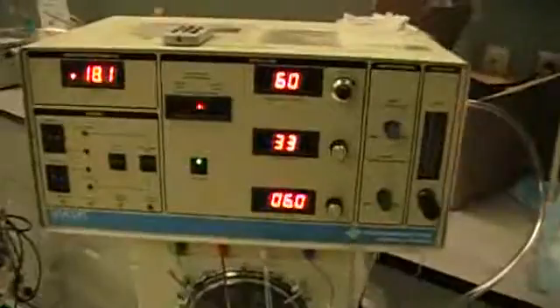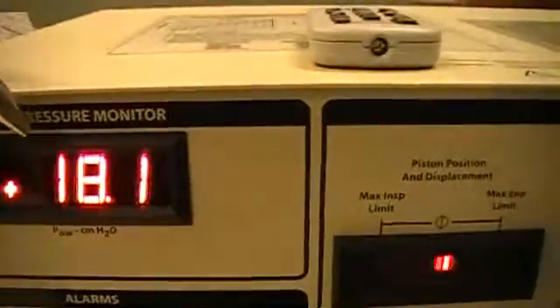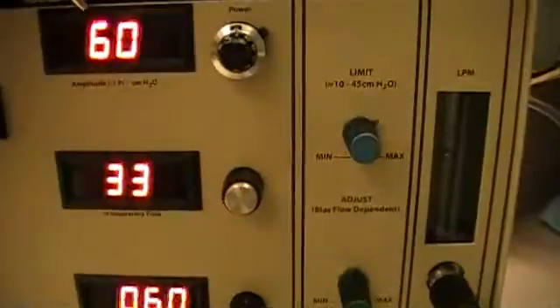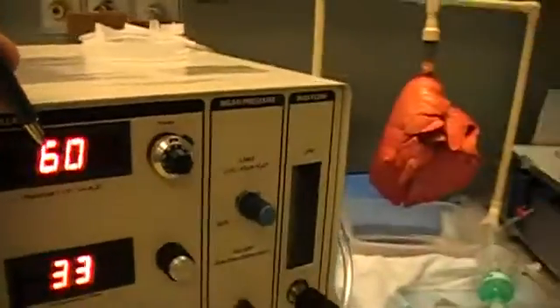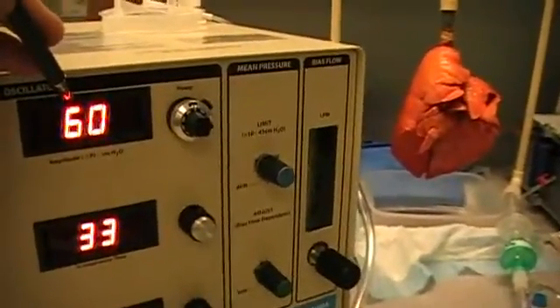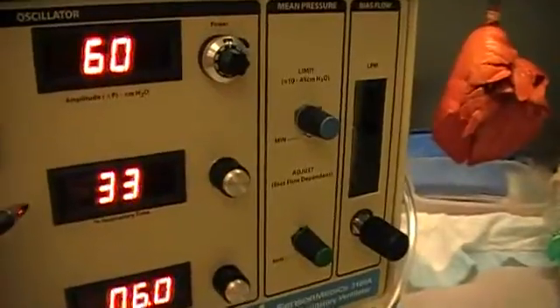With the high frequency oscillator, the first thing we do is set a mean airway pressure slightly higher than we were achieving with conventional ventilation. Then we set up our driving pressure to achieve good chest movement — something we visually assess when looking at the patient's chest. With neonatal patients this can often be achieved at quite low pressures, while adult patients may require as high as 90. Inspiratory time is usually left at 33% and not varied much.